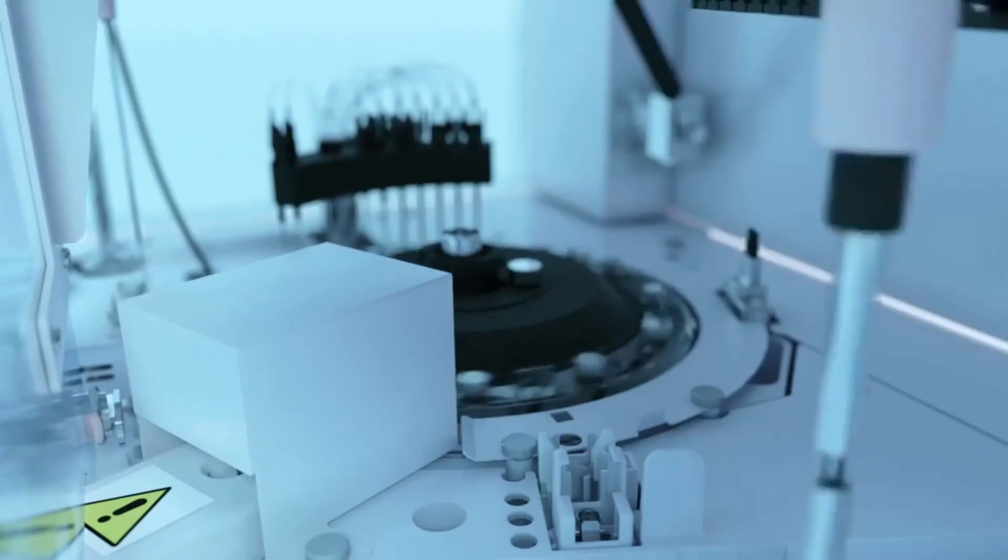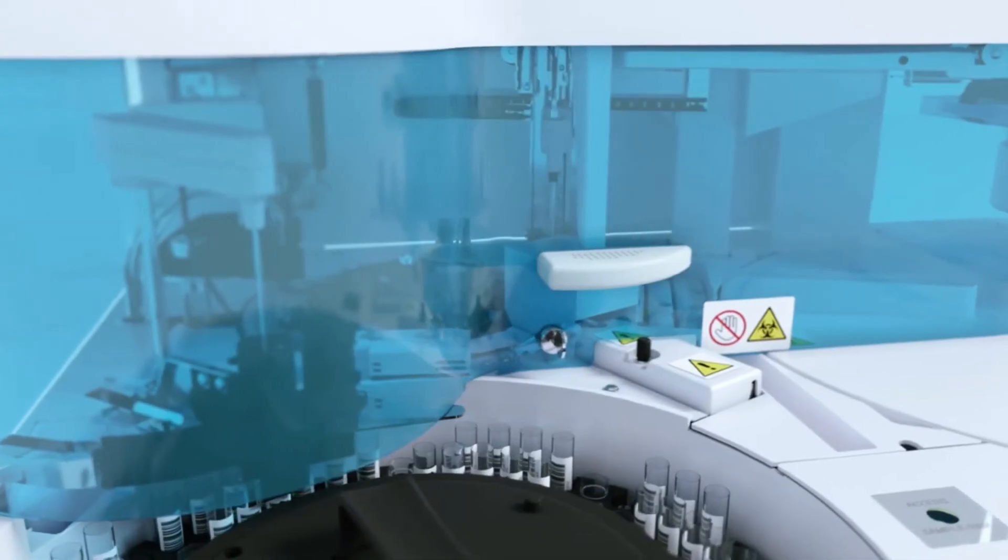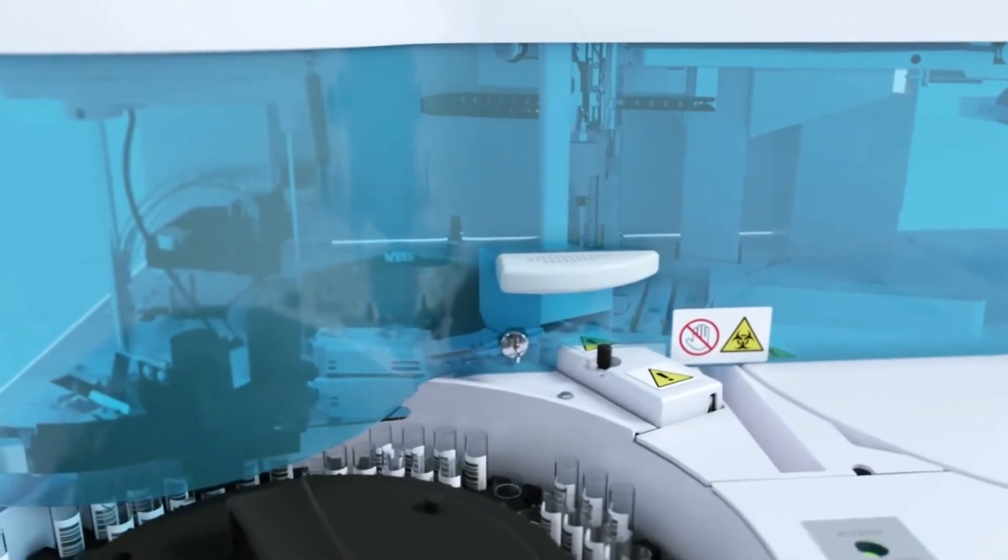After this process, a certain amount of water rinses the dispenser and then the reagents stored inside the machine are released into the reaction vessel.